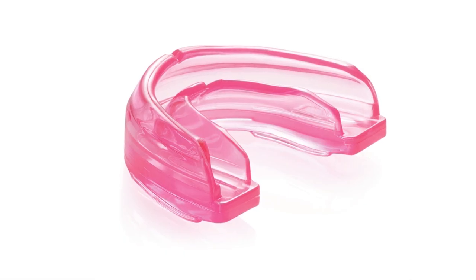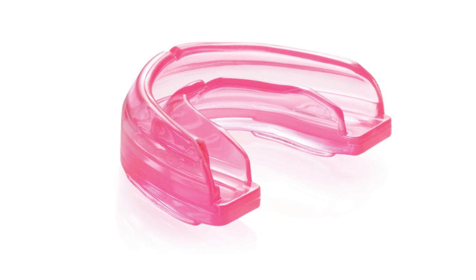The Shock Doctor Braces Mouth Guard is a unique product developed to address the requests of the orthodontic community. When brace brackets are adjusted, any mouth guard that has been form-fitted is no longer accurate as the teeth positions have been altered.